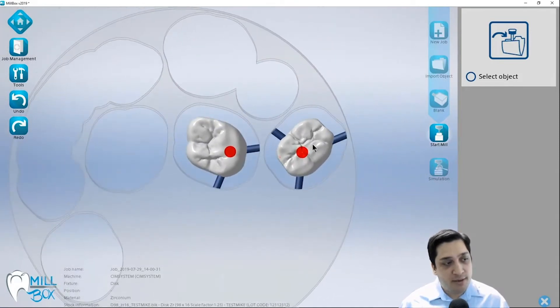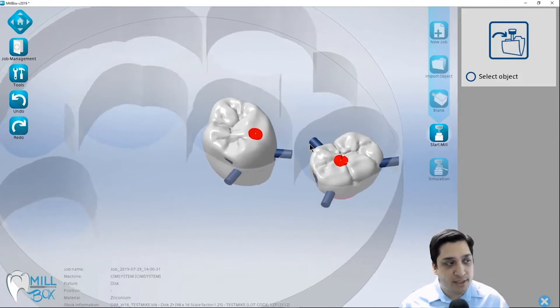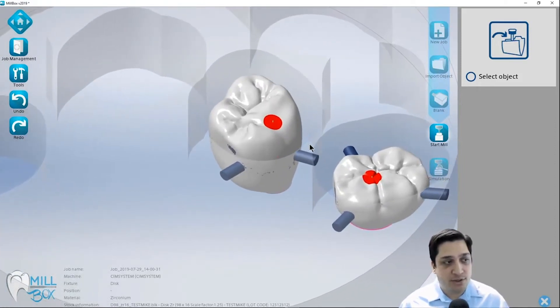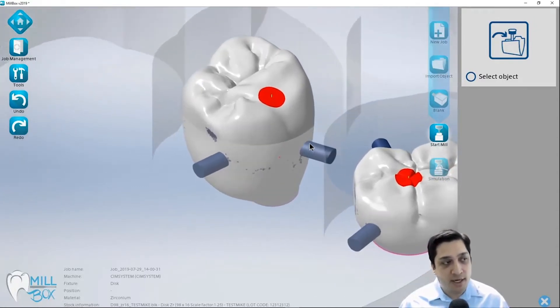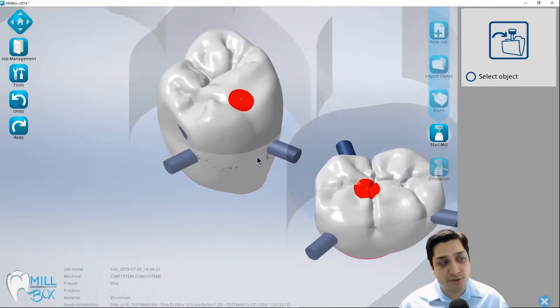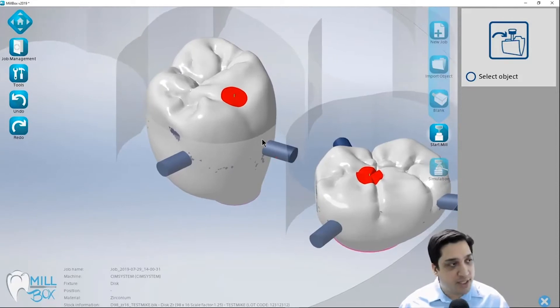There are three criteria to processing screw retained or hybrid abutments for milling. If you follow these steps they're going to ensure that you get over a 95% success rate on these parts coming off the mill. The majority of issues stem from people not really understanding what these curves or surfaces are intended to be used for, and that's what we hope to explain with this video.